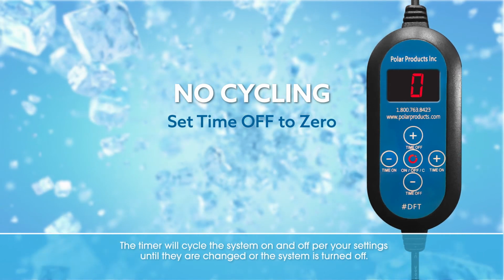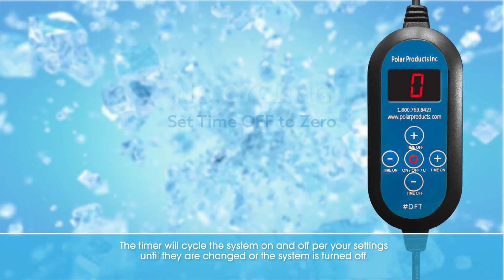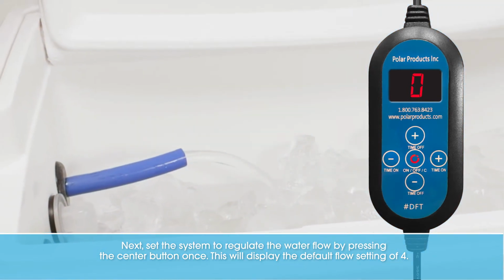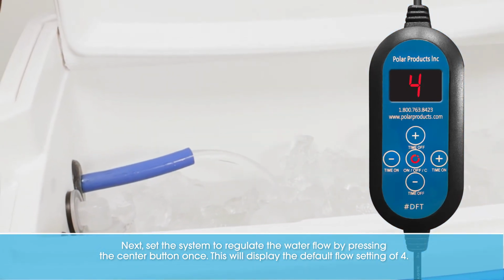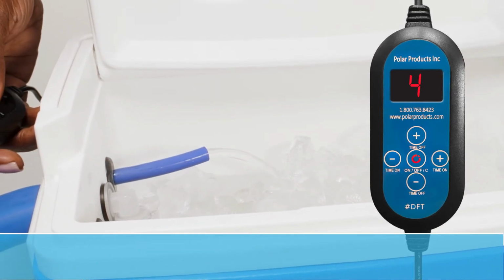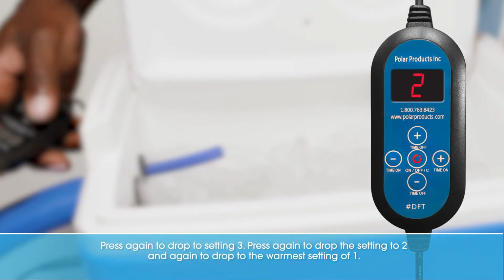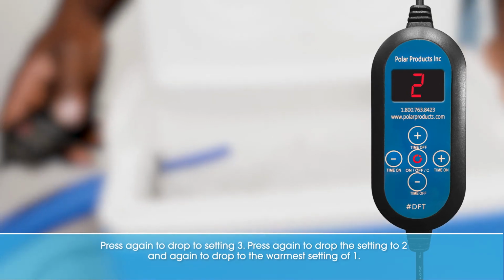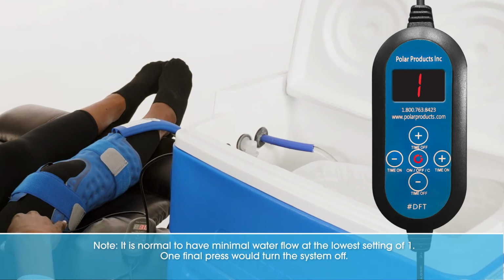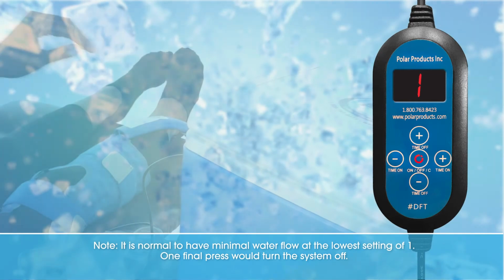The timer will cycle the system on and off per your settings until they are changed or the system is turned off. Next, set the system to regulate the water flow by pressing the center button once. This will display the default flow setting of 4. Press again to drop to setting 3. Press again to drop the setting to 2, and again to drop to the warmest setting of 1. Note, it is normal to have minimal water flow at the lowest setting of 1. One final press would turn the system off.